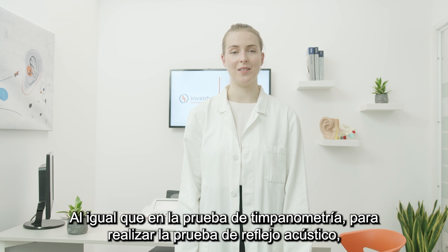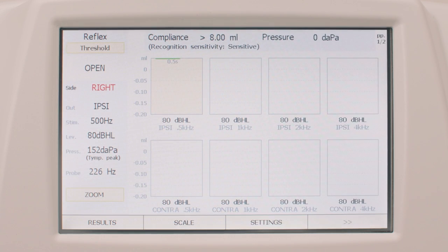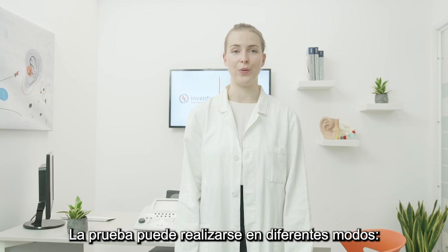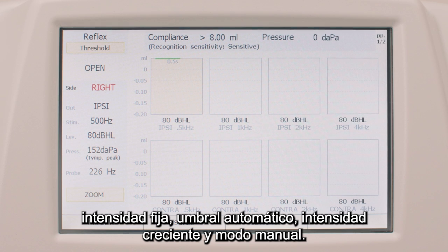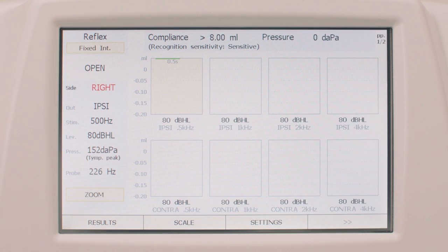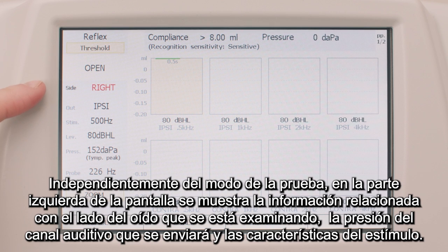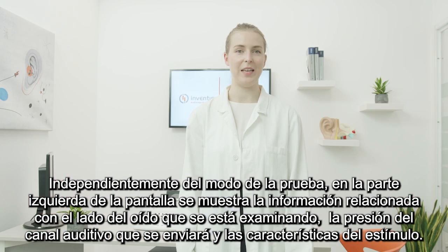Like the tympanometry test, in order to conduct the acoustic reflex test, the operator has to press the dedicated button on the keyboard. The test can be conducted in different modes: fixed intensity, automatic threshold, growing intensity, and manual mode. The current selection is highlighted at the top left of the screen. Independently of the test mode, the information related to the ear side being tested, the ear canal pressure that will be sent, and the characteristics of the current stimulus is shown on the left-hand side of the display.